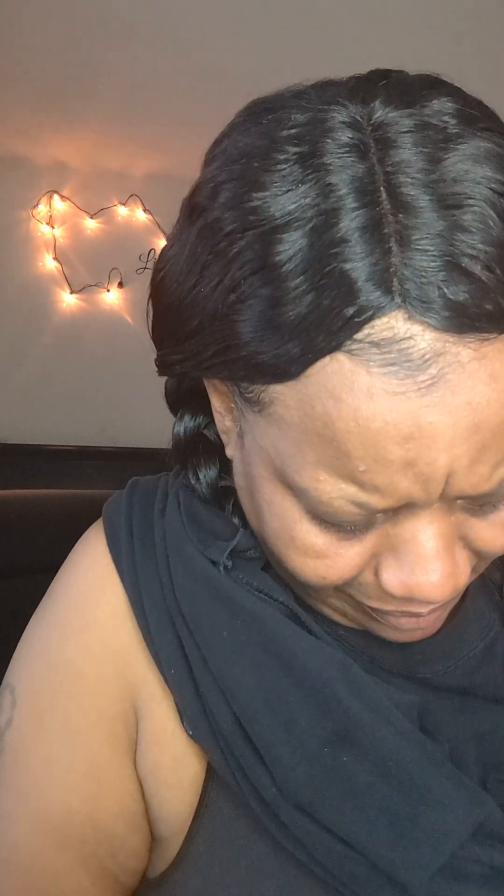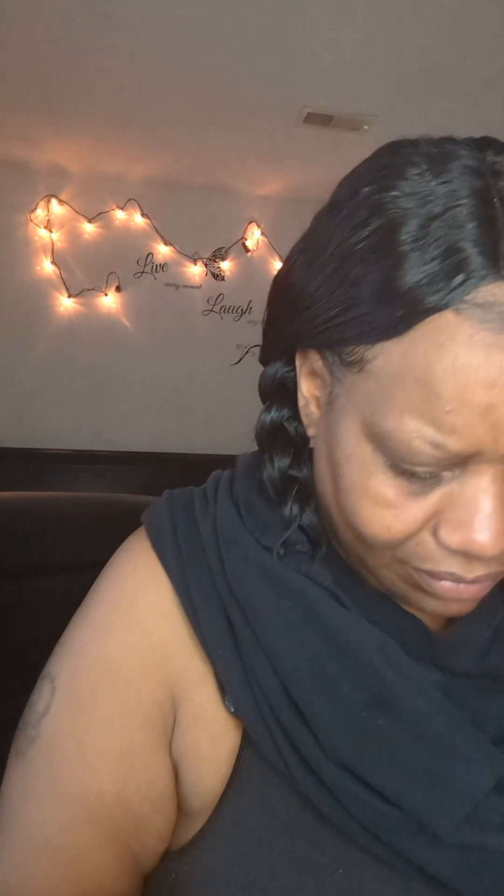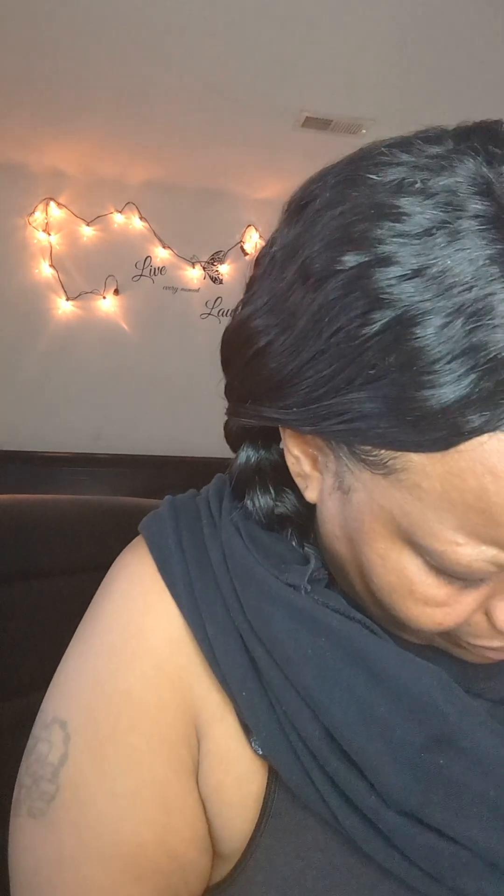I am just terrified — I feel like I'm going to make a mistake trying to line this thing up. Do I need better lighting? I'm watching as I'm seeing her do hers. Okay, I think that's about right — does that look like that? That looks like that. Press down on the sensor applicator until it comes to a stop. Okay, and then you just press down — sounds just like that.